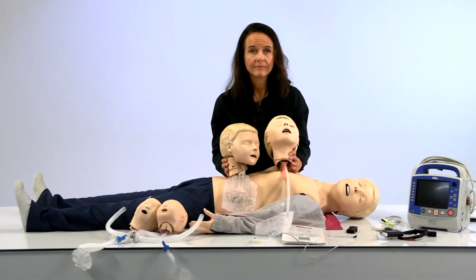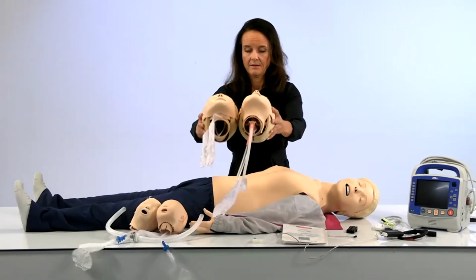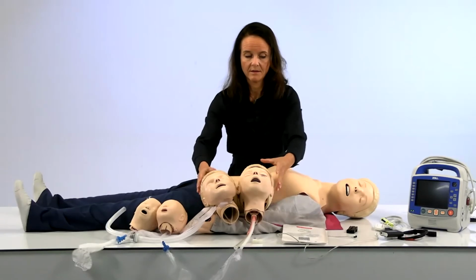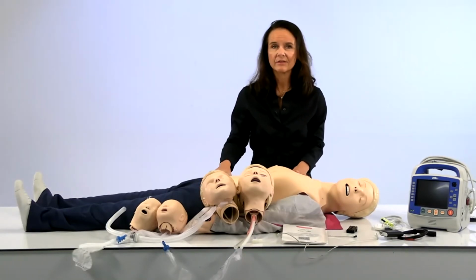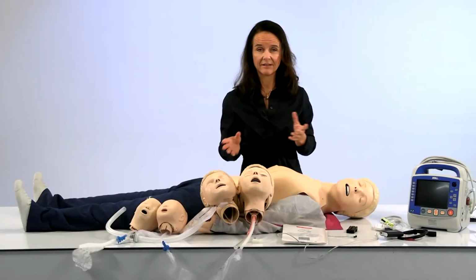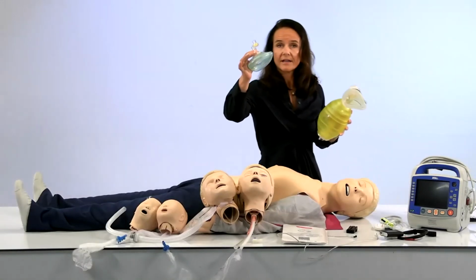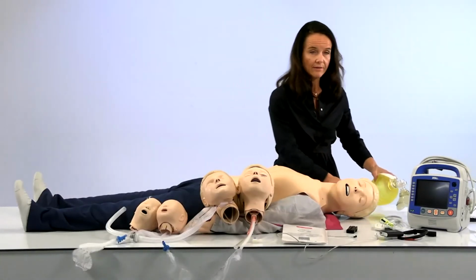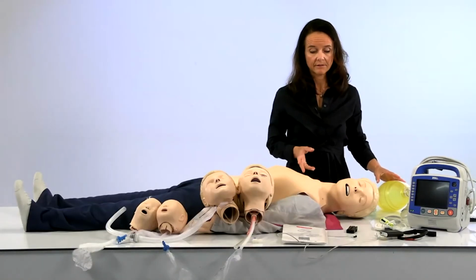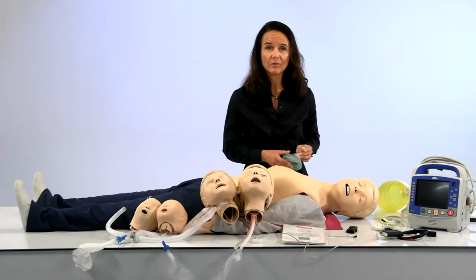So just following the questions and staying on topic, I want to ask, how often do you need to change the lungs actually? I would say it actually depends on the use case. You know that both of our heads, both the standard head and the airway heads, you can use a Laerdal pocket mask or a BVM. And of course for the airway head, you can also intubate and ventilate from there. However, for the standard head, we know that some customers are using mouth to mouth without this, like real bare mouth to mouth.